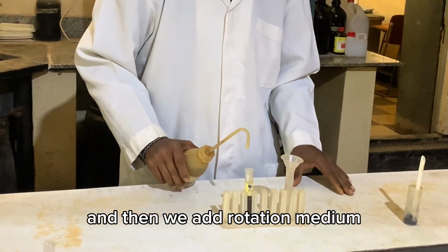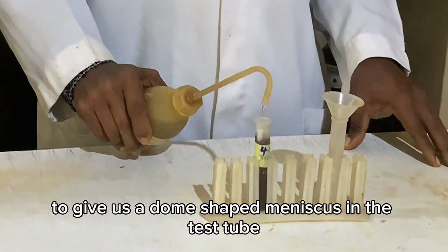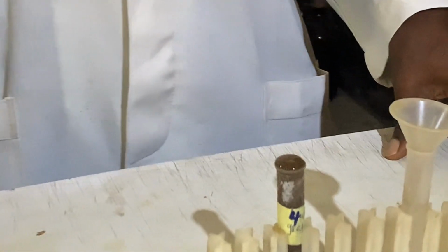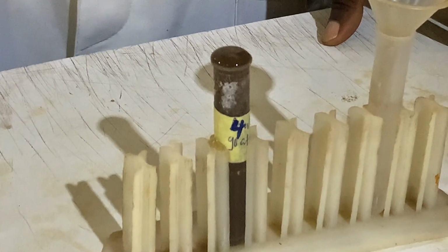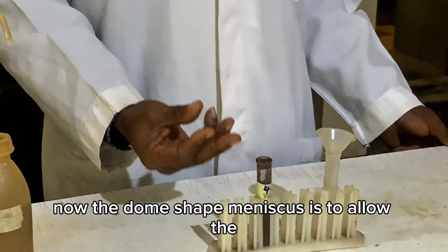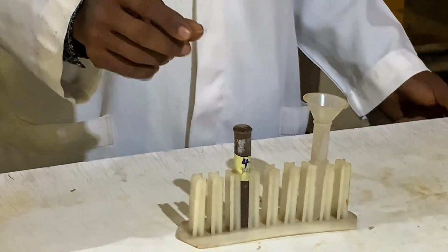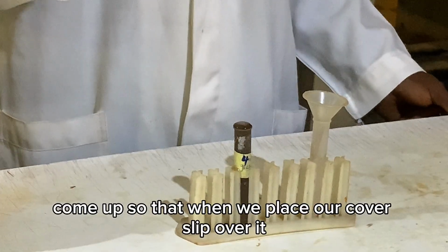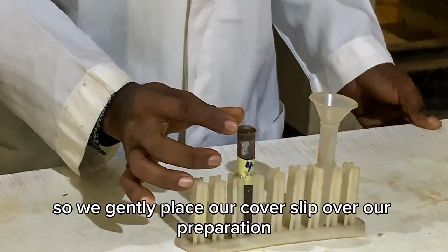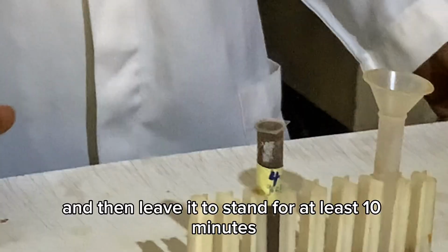And then we add flotation medium to give us a dome-shaped meniscus in the test tube. Now the dome-shaped meniscus is to allow the contents of the test tube to come up, so that when we place our cover slip over it, there will be contact between the contents of the test tube and the cover slip. So we gently place our cover slip over our preparation and then leave it to stand for at least 10 minutes.